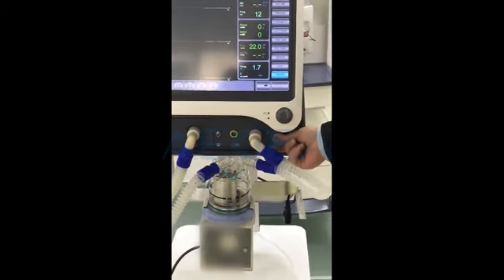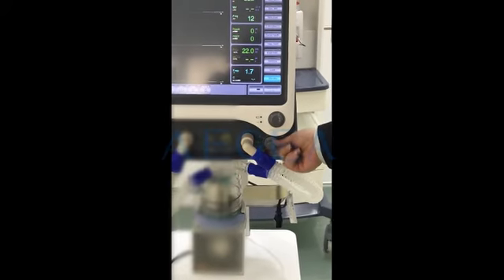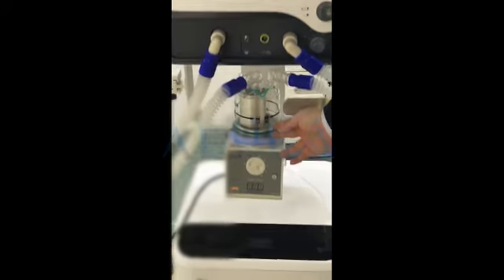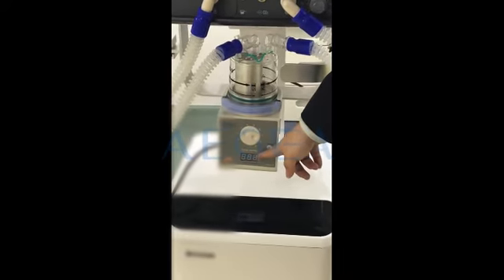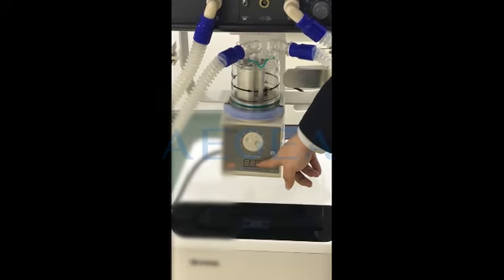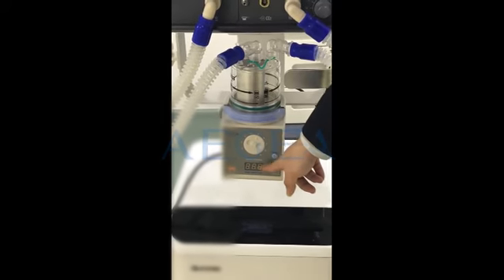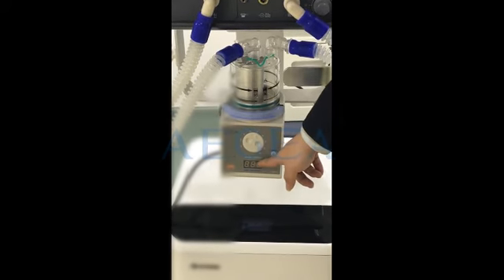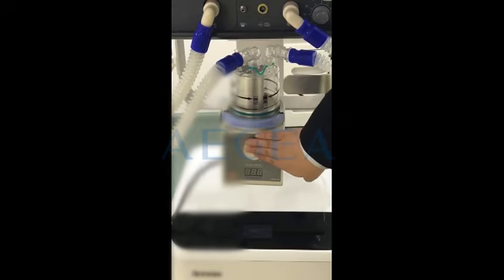This button is for adjusting the oxygen concentration. For the humidifier, the temperature is shown digitally on the screen — very convenient and comfortable. We can use this button to set the temperature for the patient.